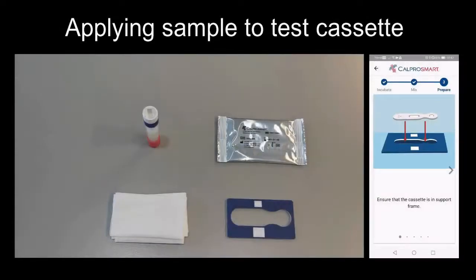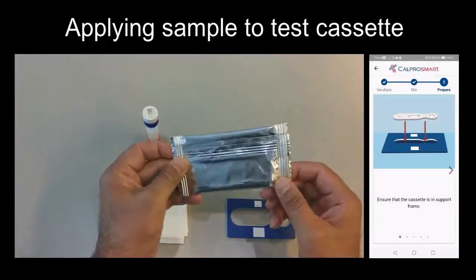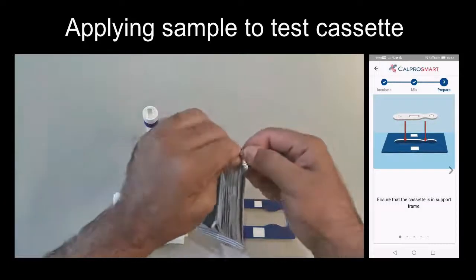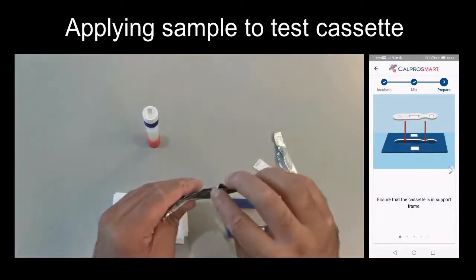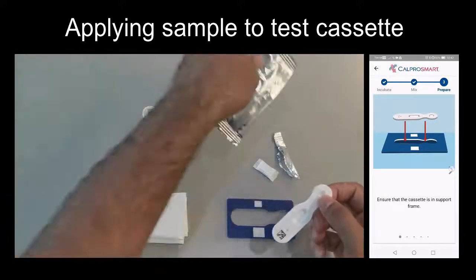The next step is to apply the sample to the test cassette. Open a pouch and place the test cassette into the blue frame. Take a note of the expiry date on the pouch to ensure that the test cassette is not expired.